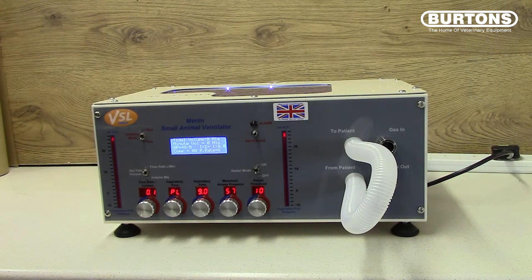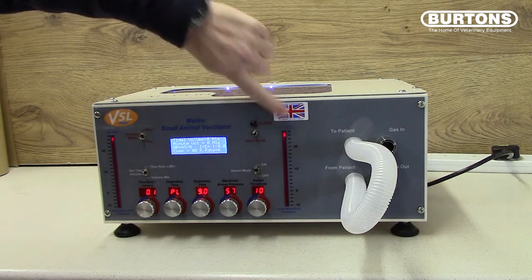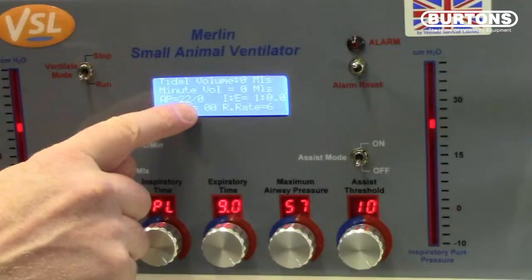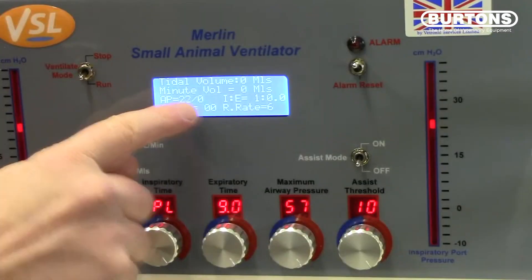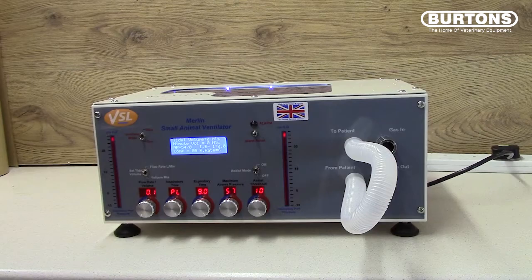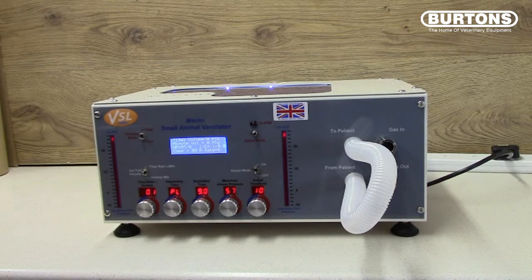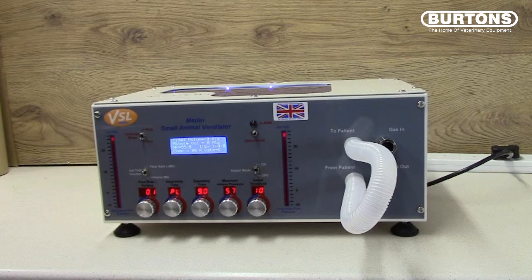Once the bar graph gets to the top it will stop, but the pressure will continue to rise as indicated by the value on the screen. This value is shown as AP equals, and we are waiting for it to get to a value of 57. 57 centimetres represents the highest pressure that MERLIN will see, and a flow rate of 0.1 litres per minute is only 1.5 mils per second, so this will pick up even the tiniest leaks inside MERLIN.